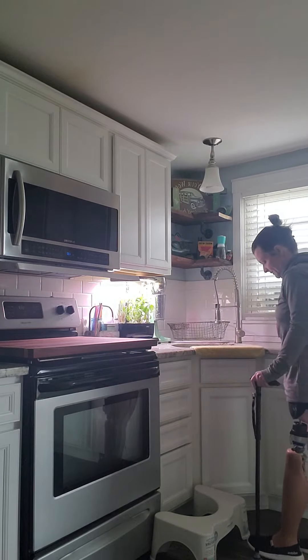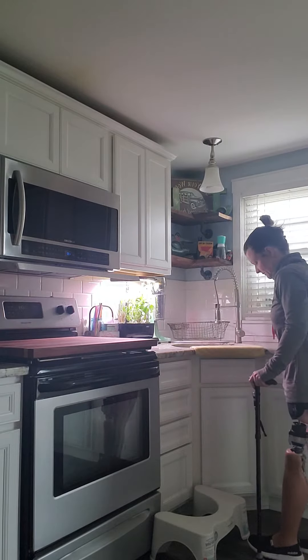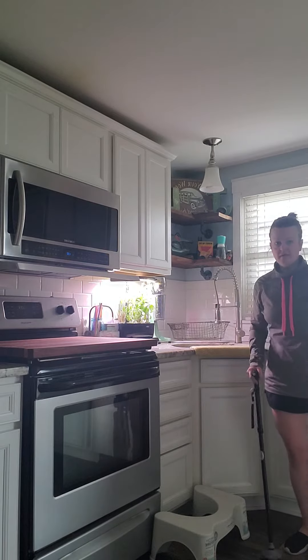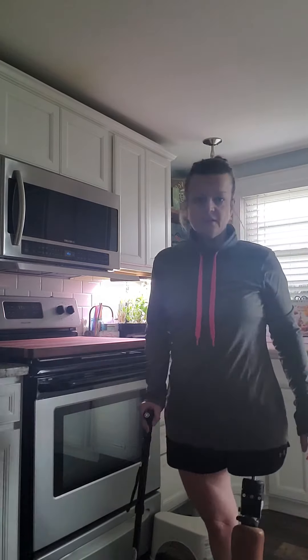I need to slow my step. Lots of practice. It is not easy, but let me show you what it looks like when I walk.